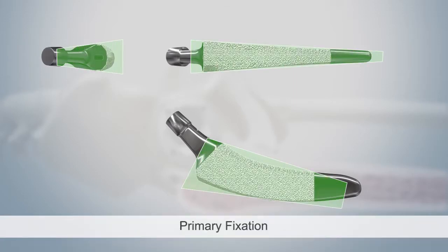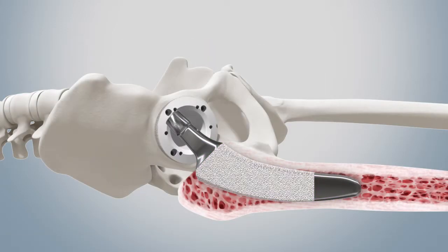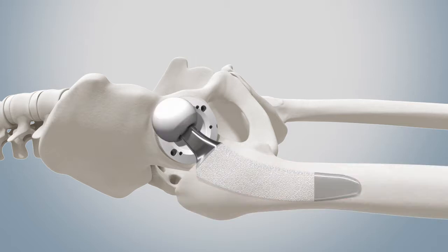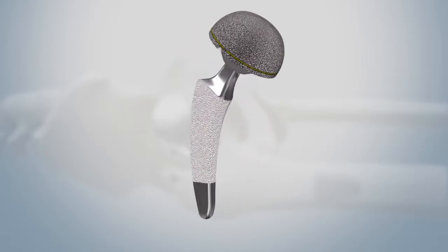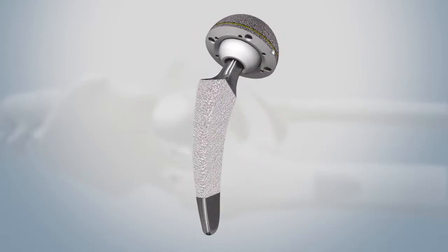Due to the isoelastic or conical design of the cup or stem respectively, very good primary stability can be ensured so that in the vast majority of cases immediate full loading is possible after the surgery.